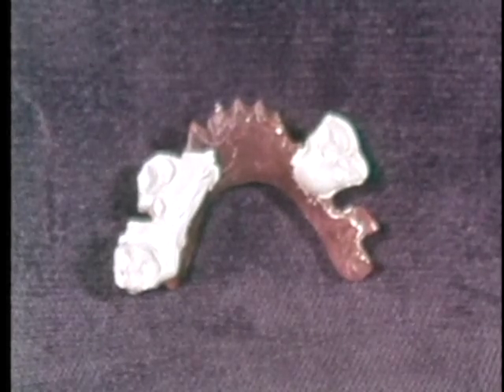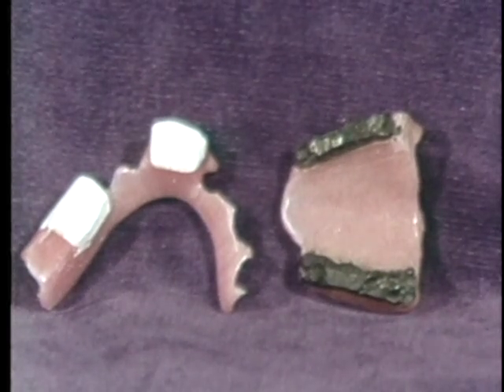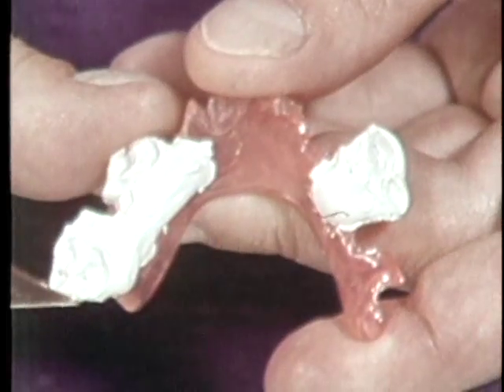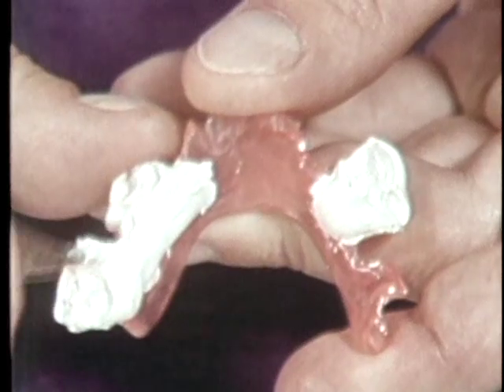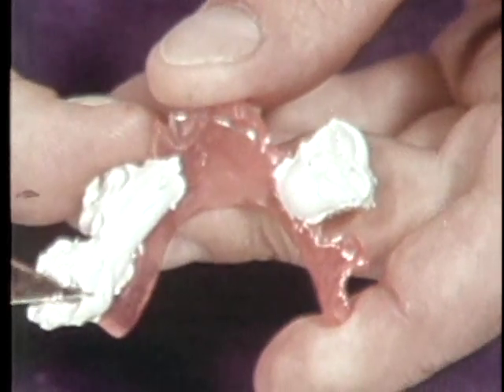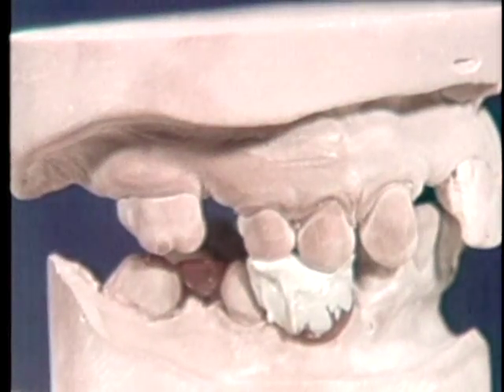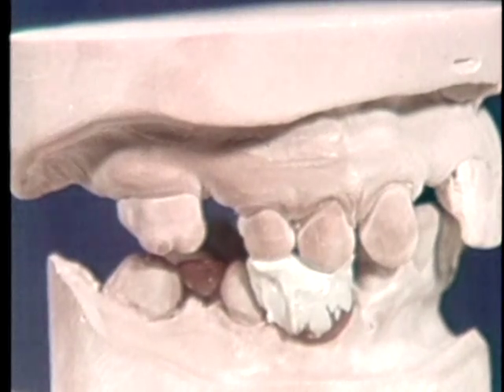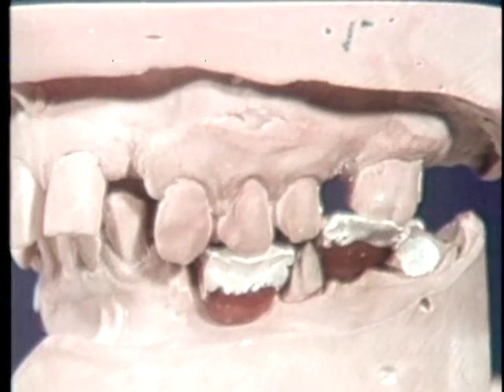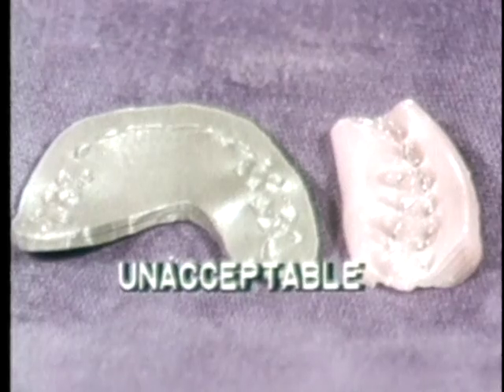Any suitable zinc oxide eugenol paste is an ideal recording material. Modeling plastic or plaster are also acceptable, but due to their brittleness are susceptible to fracture during shipping. Once the recording is made, special care is given to trimming the registration. Zinc oxide eugenol reproduces extremely fine detail not shown in casts obtained with alginate impressions. Subsequently, to facilitate complete seating of casts, all but the cusp tip indentations must be removed from the recording. When recording material is utilized, it must be sufficiently rigid when set to prevent distortion during shipping.